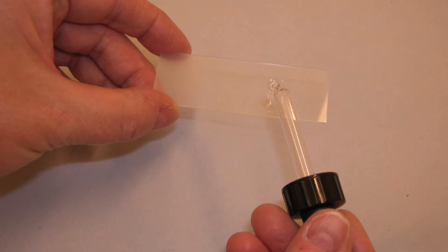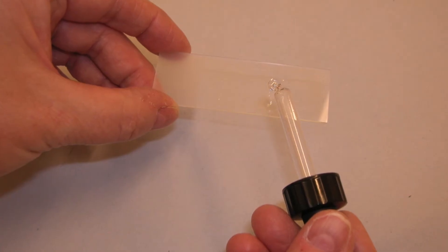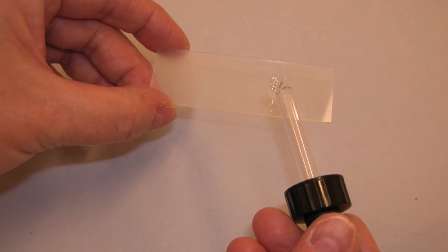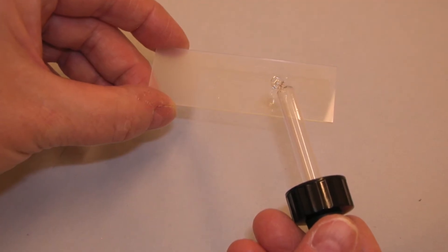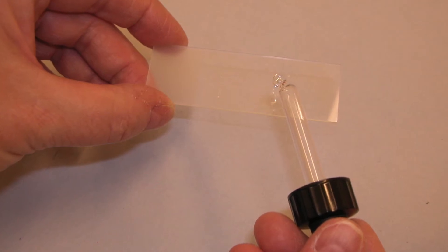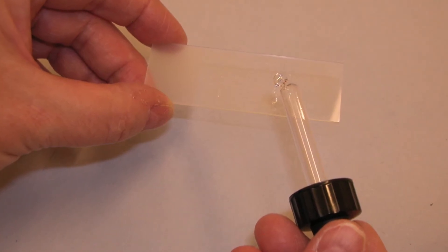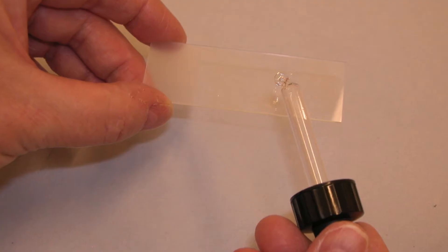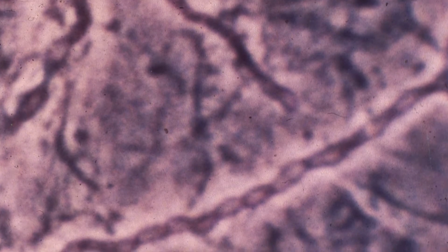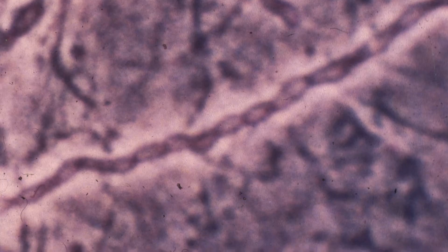Specimens can be examined under the microscope after treating them with a solution of potassium hydroxide to identify the presence of a fungus. This can be performed both as a bedside procedure in clinic or in a laboratory, and it takes about 20 minutes. This is a potassium hydroxide treated specimen and the fungal hyphae can be seen in the image.